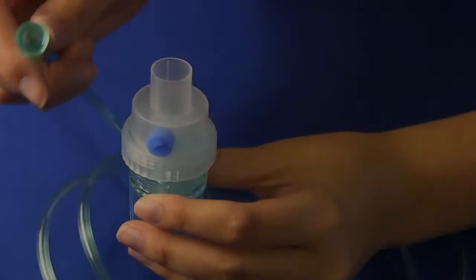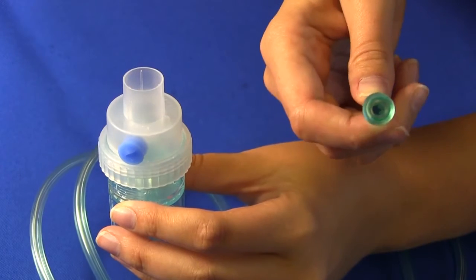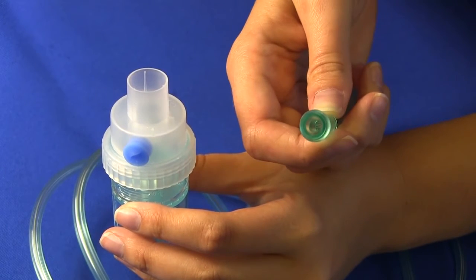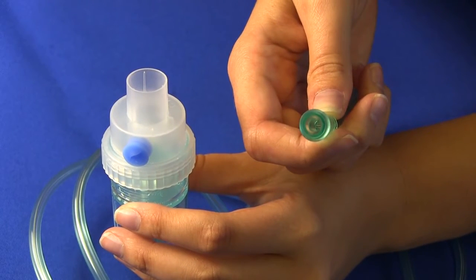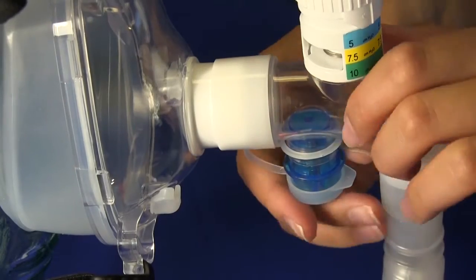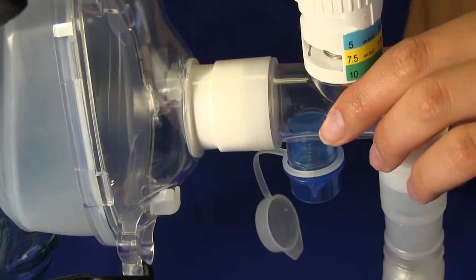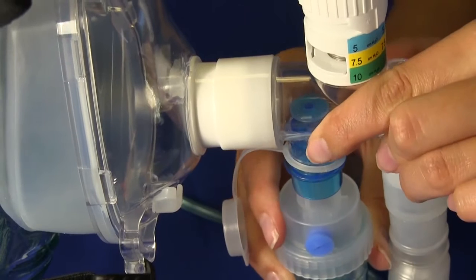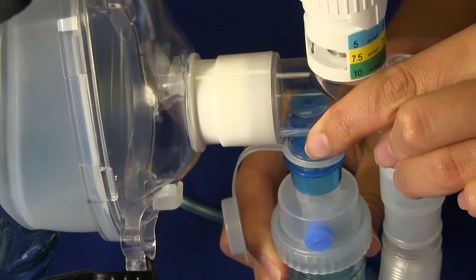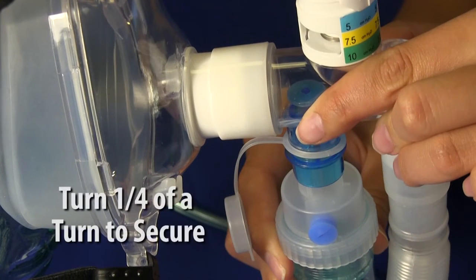Once you've done so, you can connect your supply tubing with nebulizer canister to the oxygen supply. Remove the protective cap from the nebulizer port. Push the nebulizer canister into the port and turn one-fourth of a turn to secure.